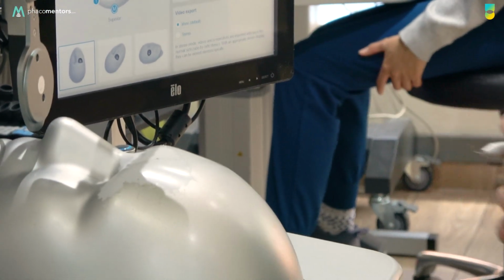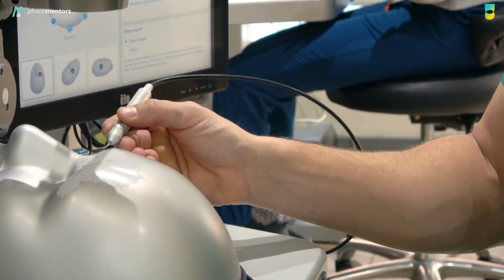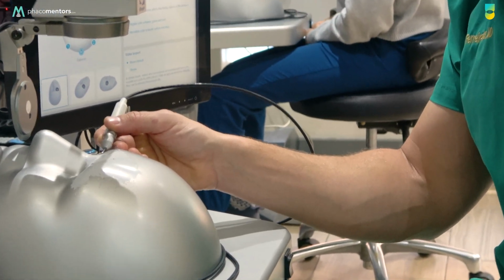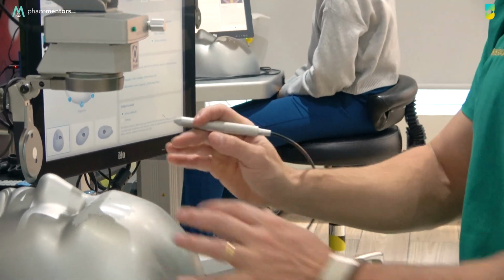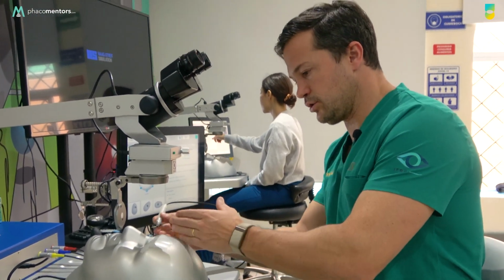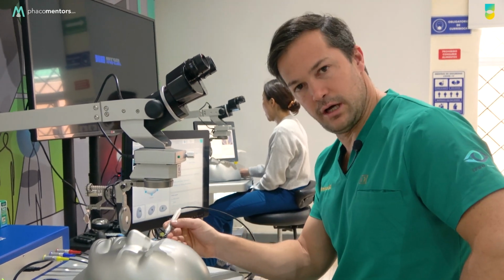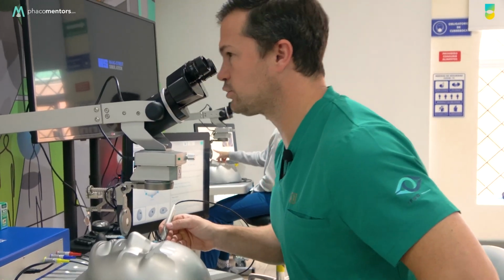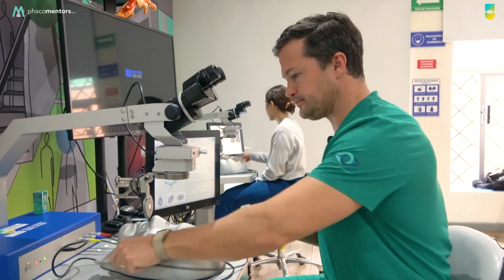And it's very important that before you do a task, you watch from outside, okay? You grab the instrument correctly and you find a hole and you enter, and then you go to the microscope. I repeat, grab the instrument, find the incision or the paracentesis you're going to work, that is a hole in the physical eye, and then you're going to enter the eye. And then you go to the microscope so you protect the hand pieces of the simulator.